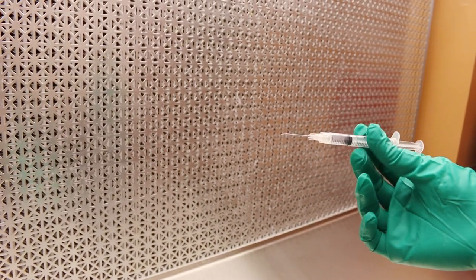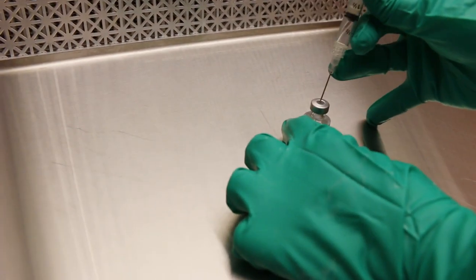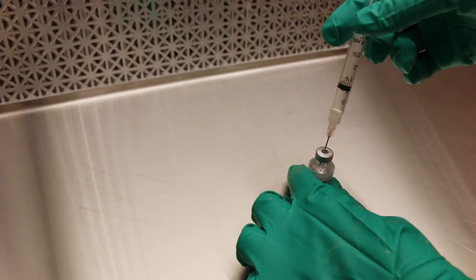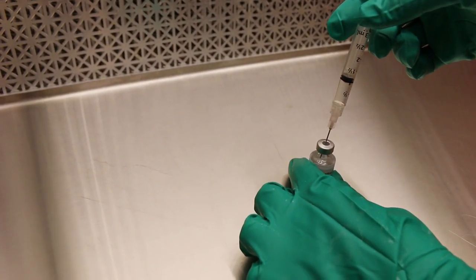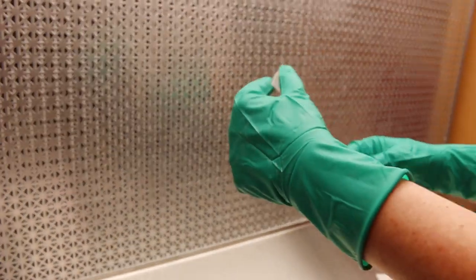Step eighteen, insert the needle into the vial using a slight upward rotation of your wrist, keeping the needle in contact with the vial's rubber top throughout. Step nineteen is to invert the vial using a clockwise motion and inject air into the vial.